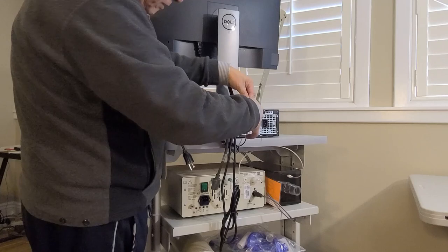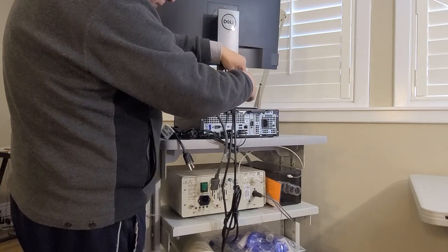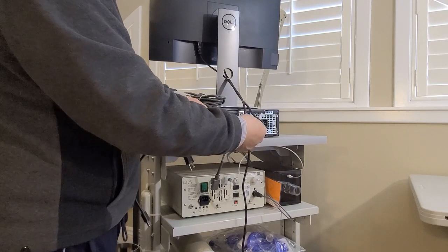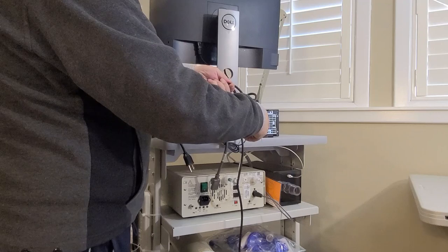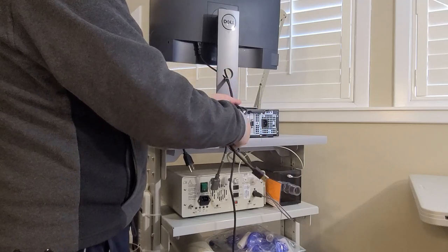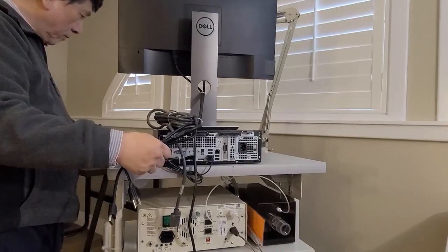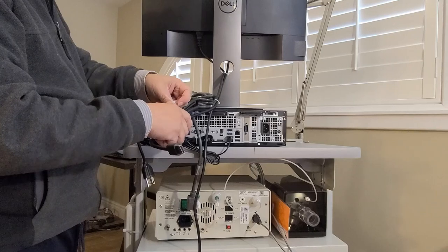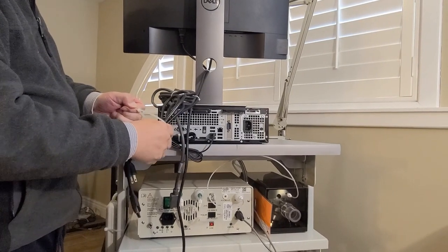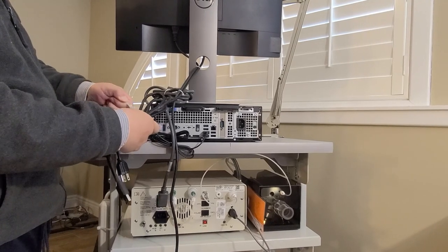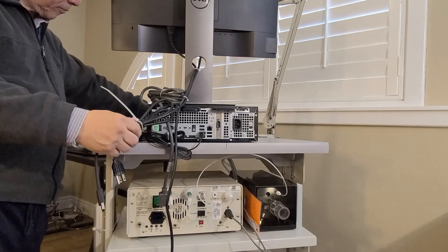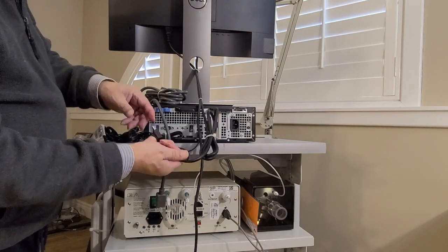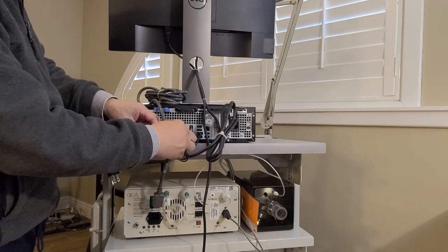After I tidy up those two, cut it off, and then cut it off. Then I went to get the DP cable and cut off the extra piece and insert the DP cable onto the computer's DP socket.